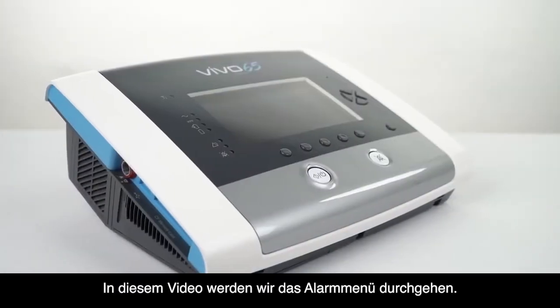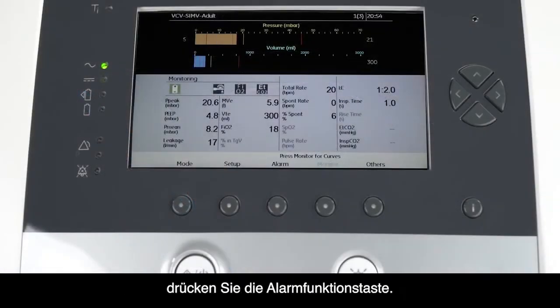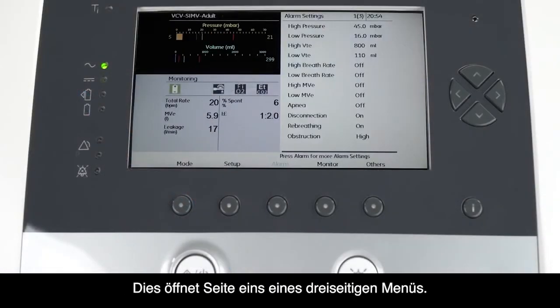In this video, we will be going through the alarm menu. To open the alarm menu, press the alarm function key. This will open page 1 of a 3-page menu.